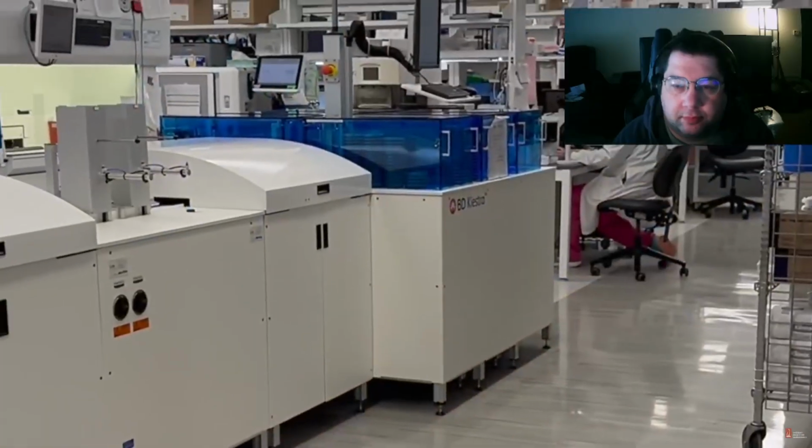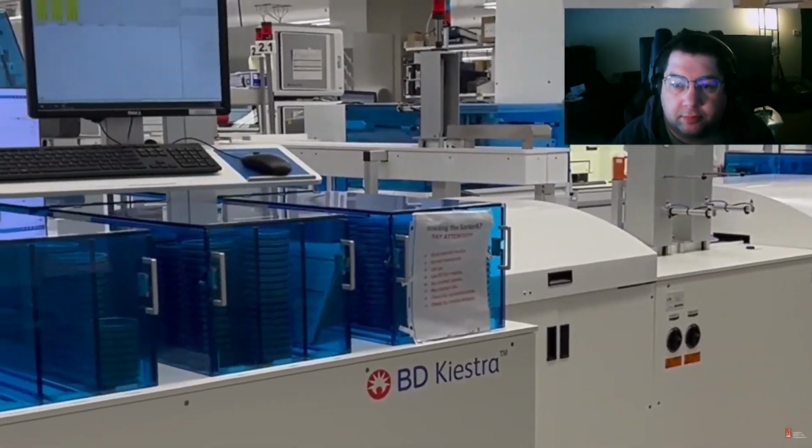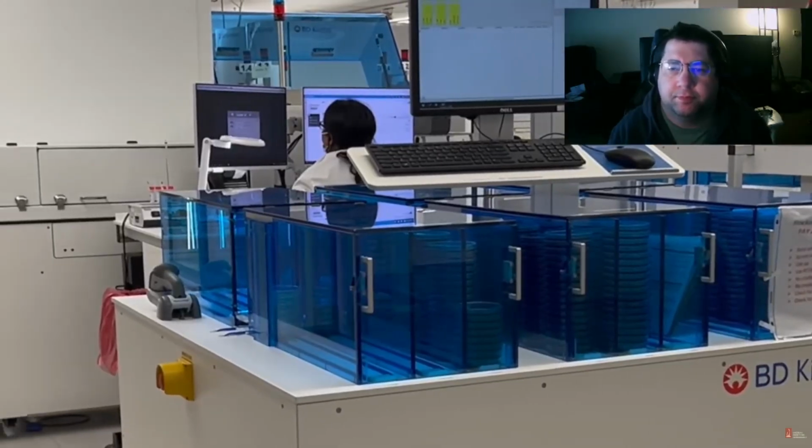Hi, I'm Andrea Howard, a postdoctoral fellow in the Medical and Public Health Microbiology program here at the University of Rochester Medical Center. I will be your tour guide in this video, and on behalf of Dr. Dwight Hardy, our laboratory director, and our laboratory staff, welcome to UR Medicine's Clinical Microbiology Laboratory. This lab tour video will highlight diagnostic testing that is performed in a clinical microbiology laboratory.